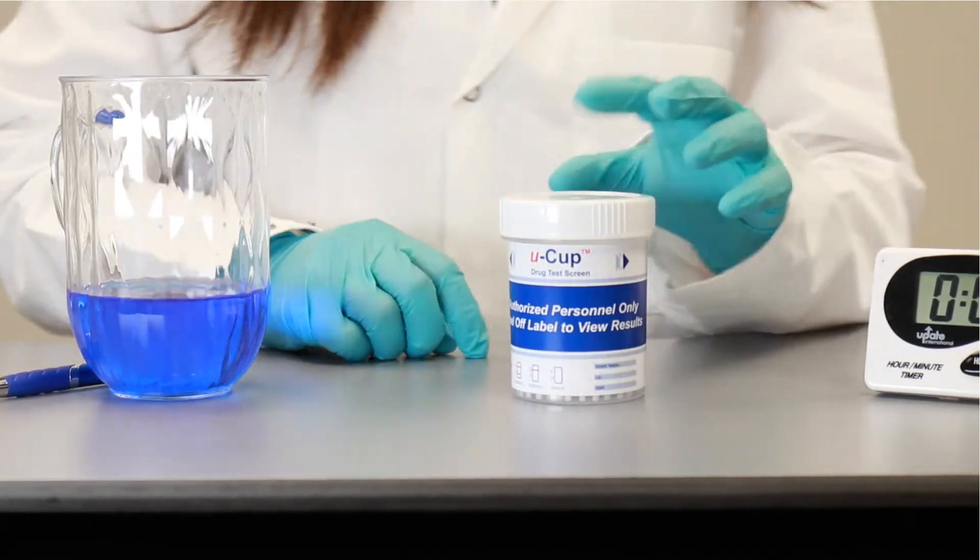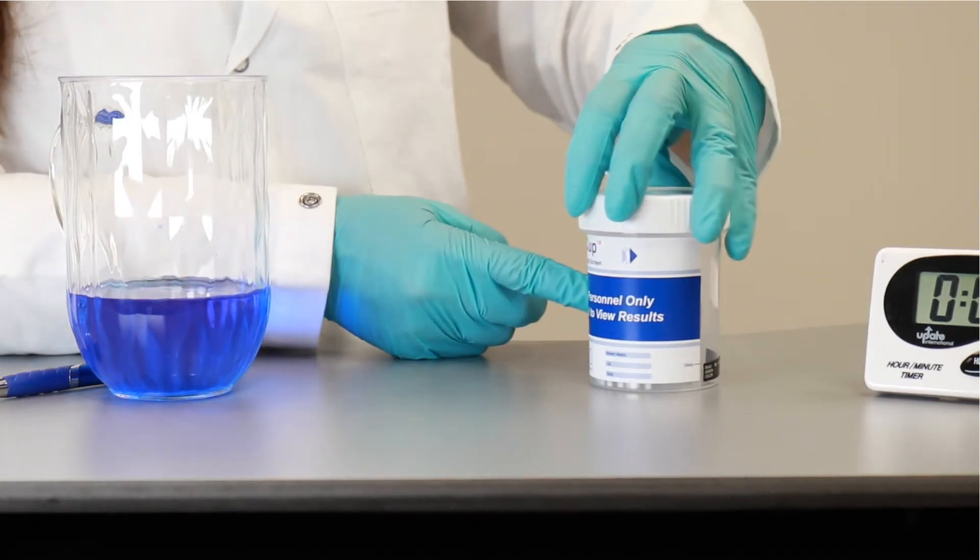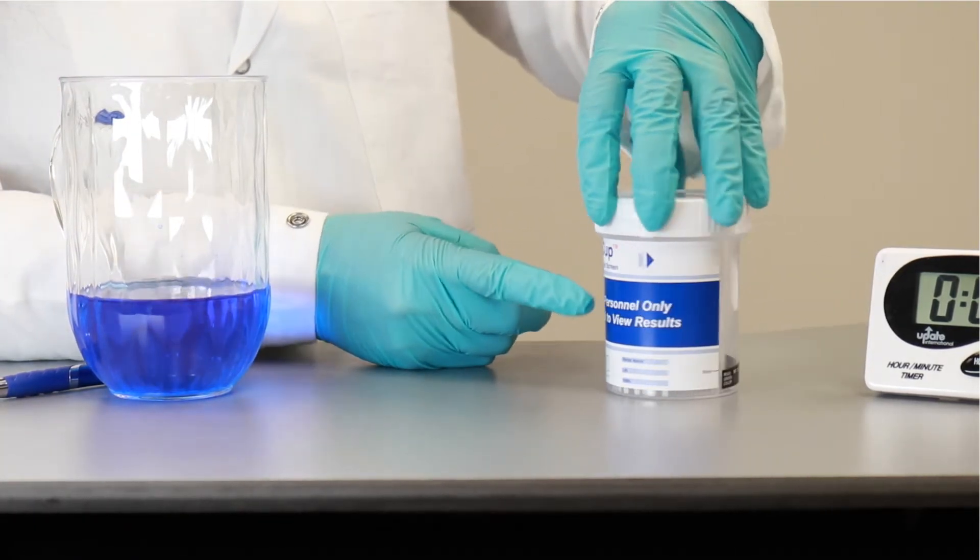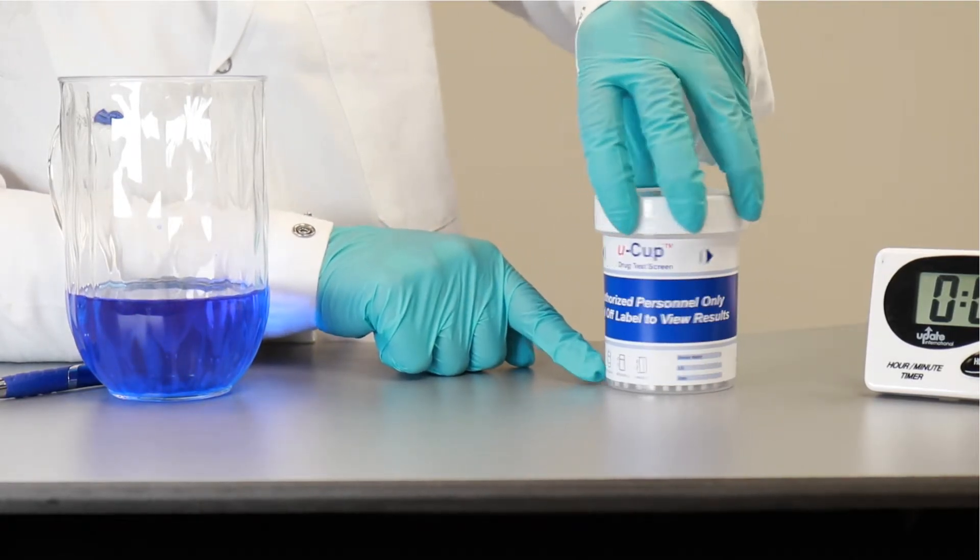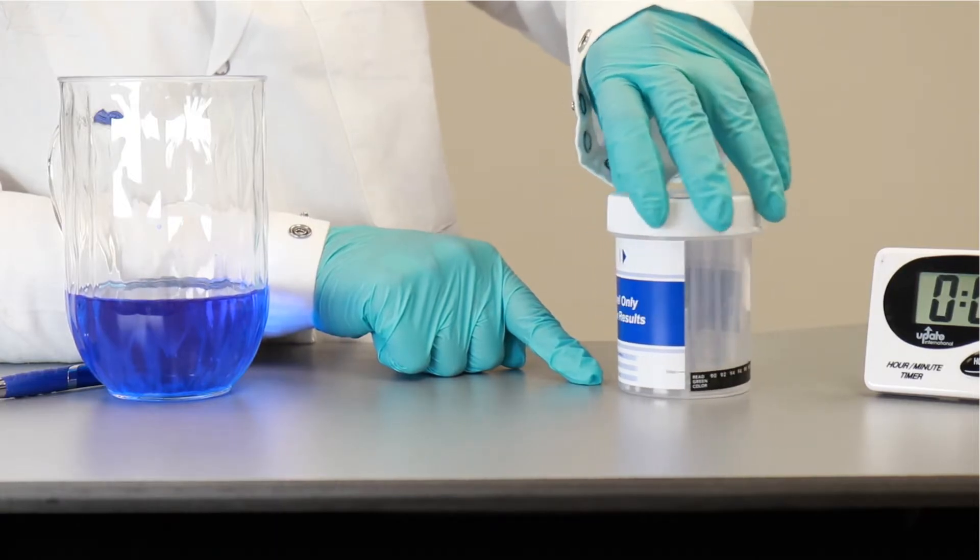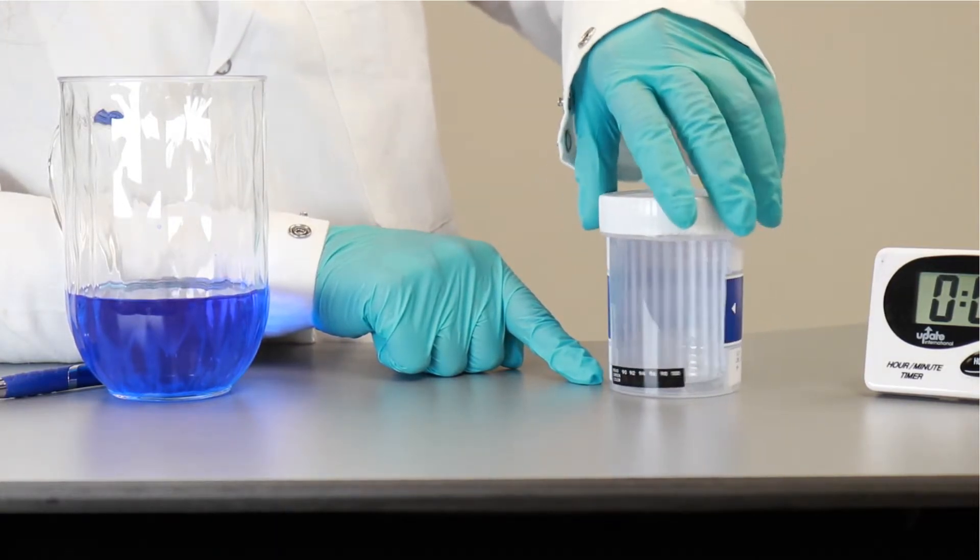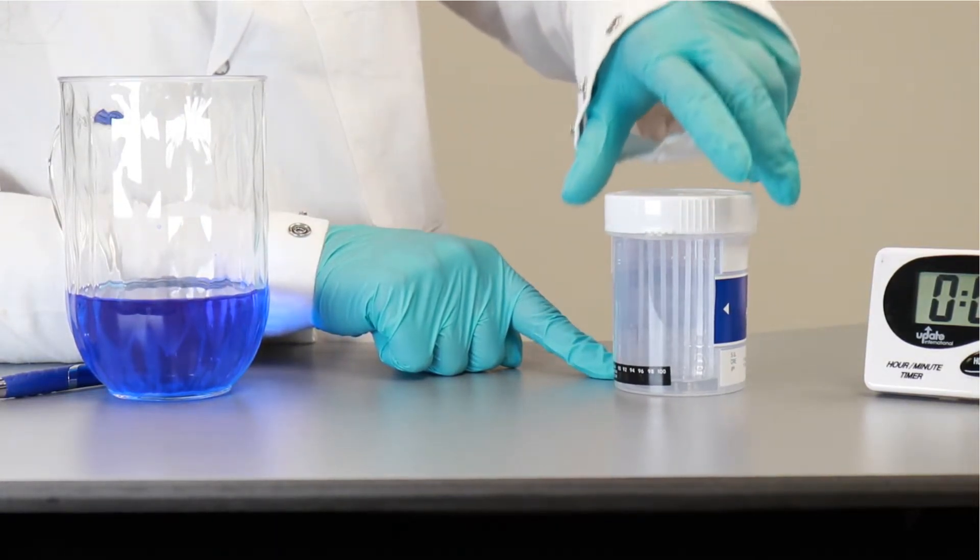What you also have is a peel-off label right here that you can peel it off and read the results when they are ready. There are instructions to read the results, which I'm going to go over after I show the test.